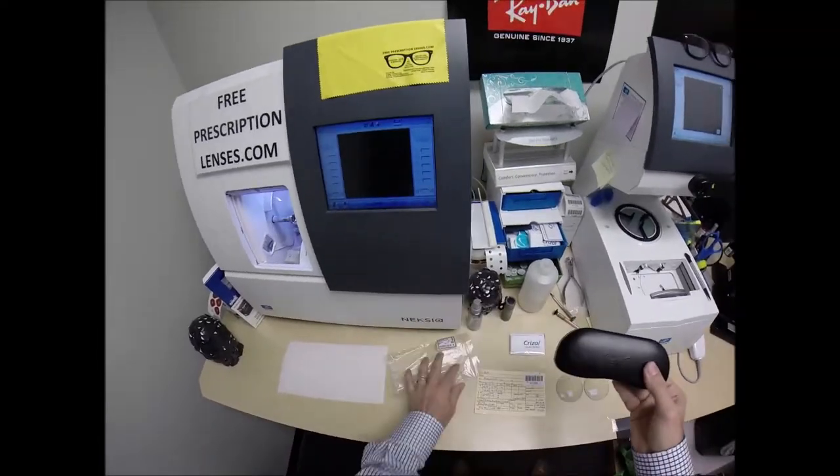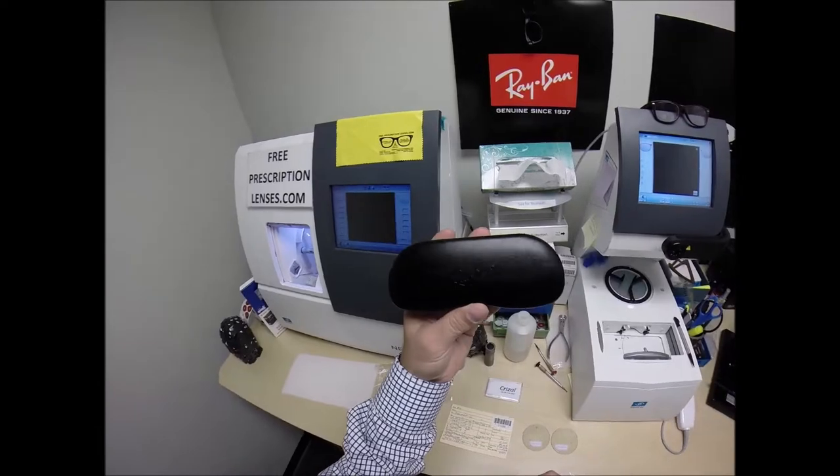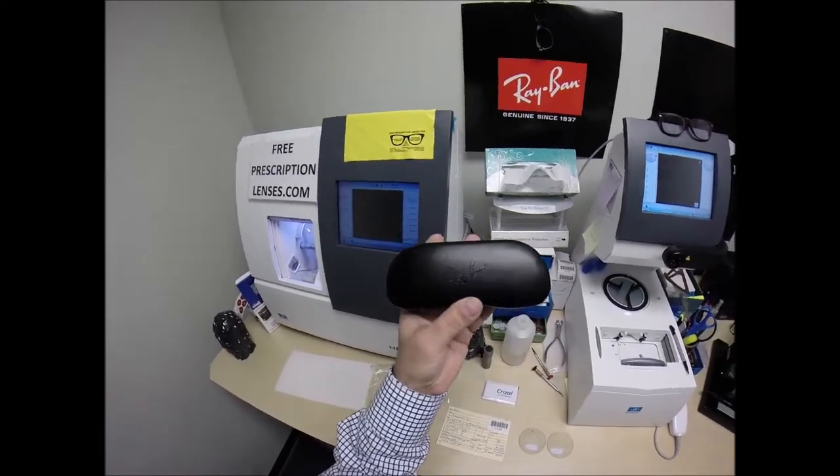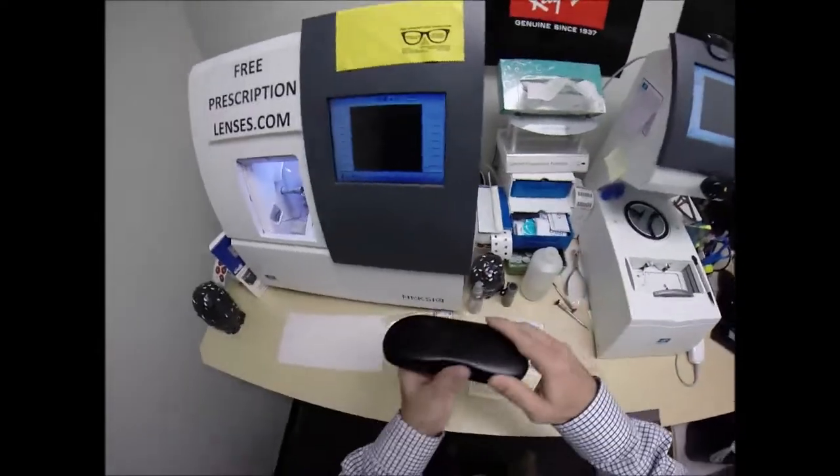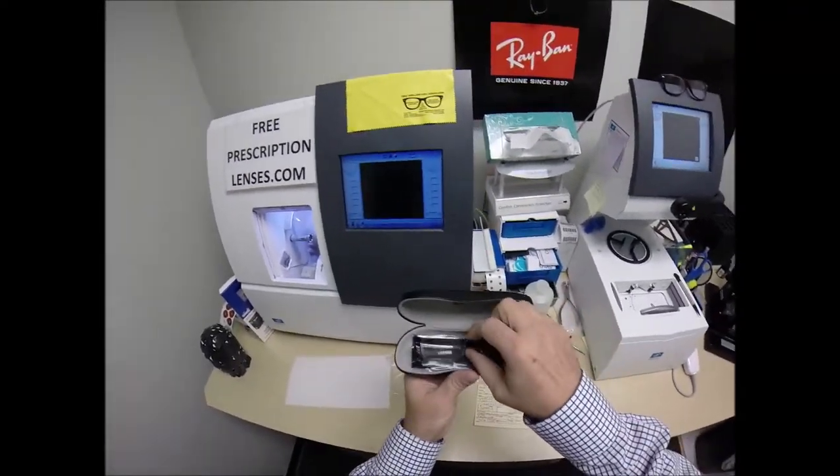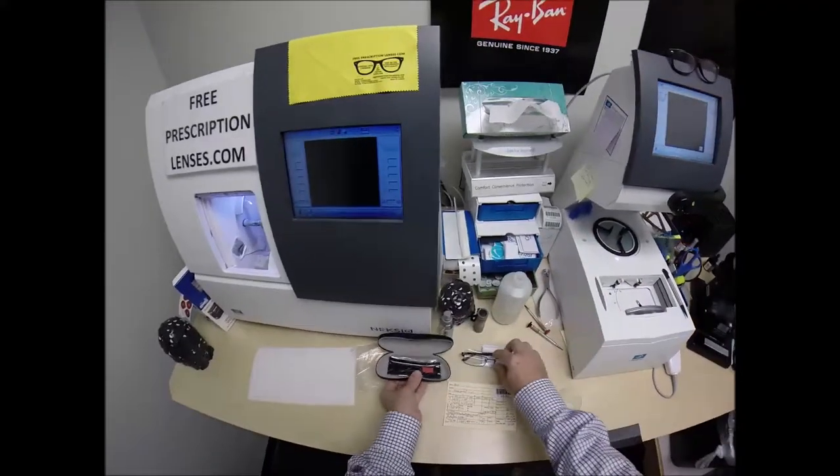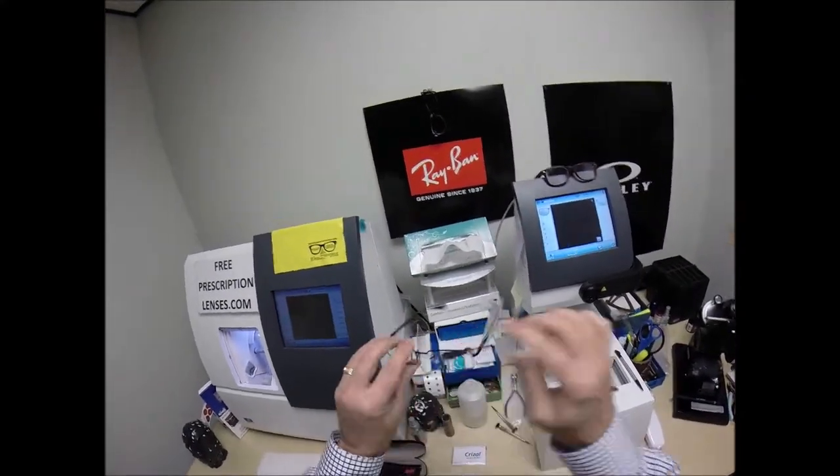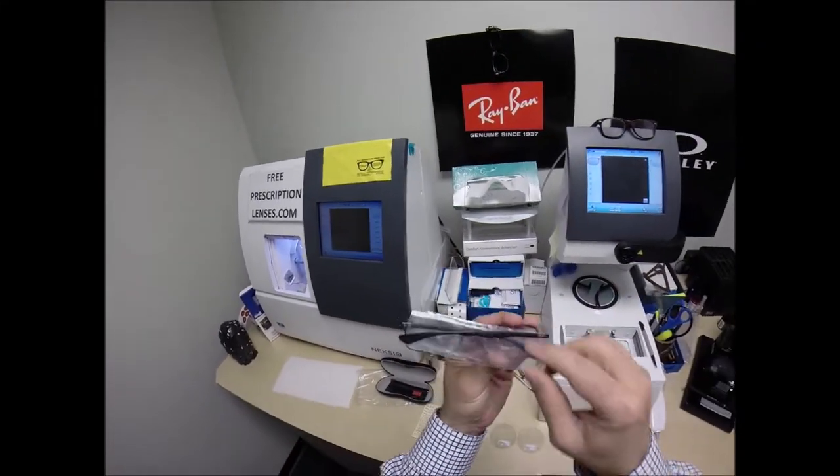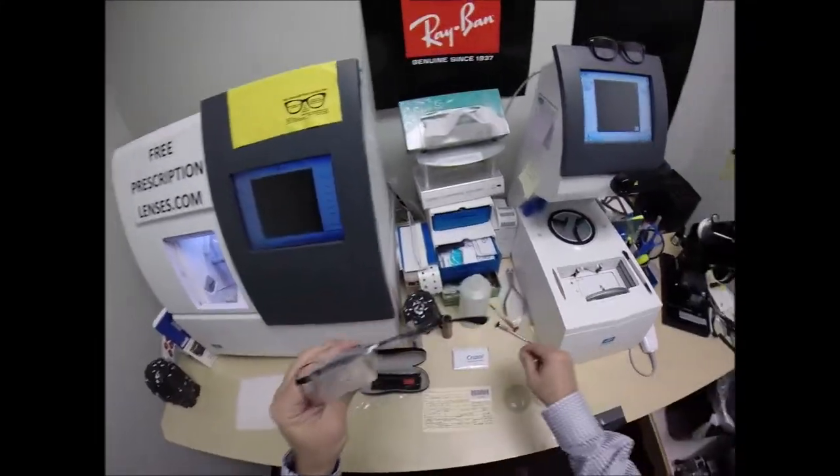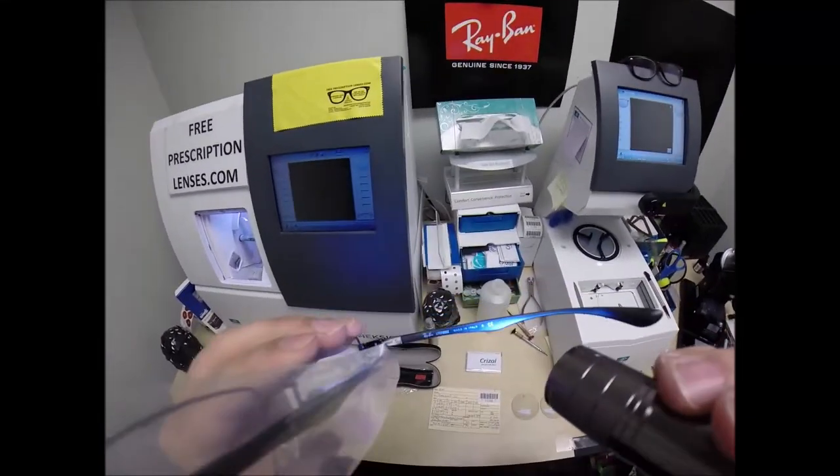Let me take everything out of the original packaging as Ray-Bans sends it to me. Your hard shell Italian leather Ray-Ban case. You know how you can tell it's hard? That's how. Ow, that did hurt. I need to practice that before doing that live. So your Ray-Ban case, your Ray-Ban cleaning cloth, the star of the show, the main attraction.